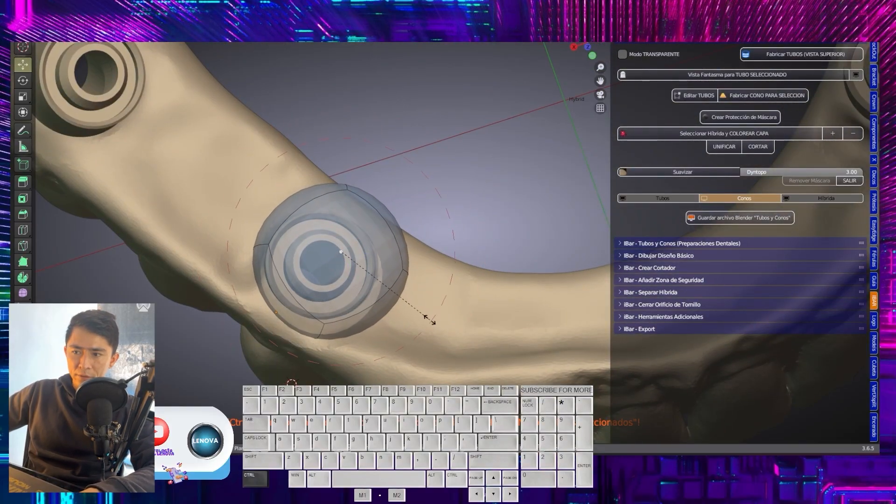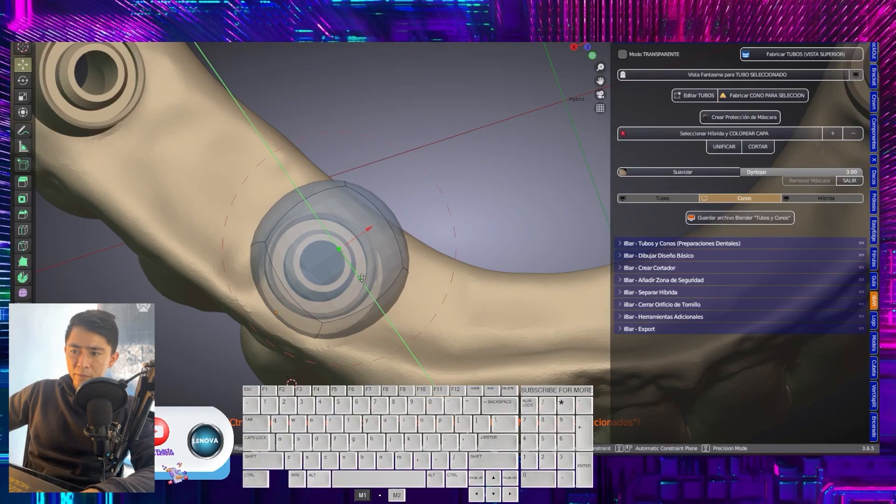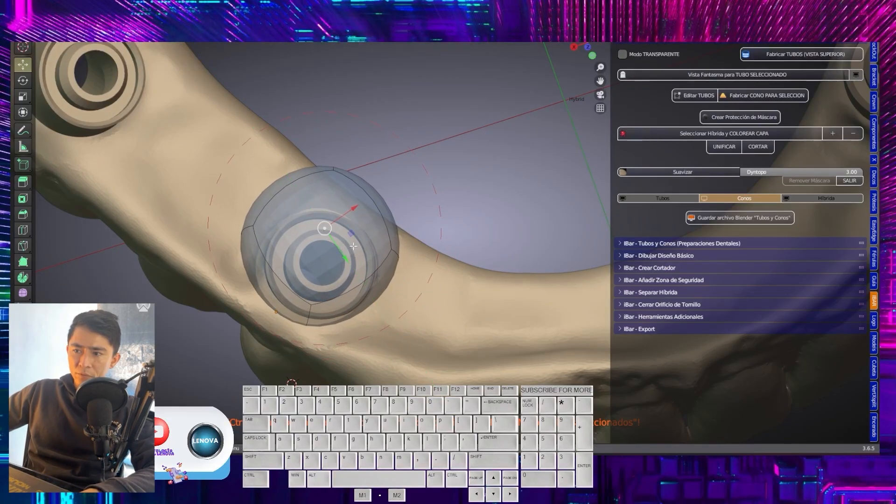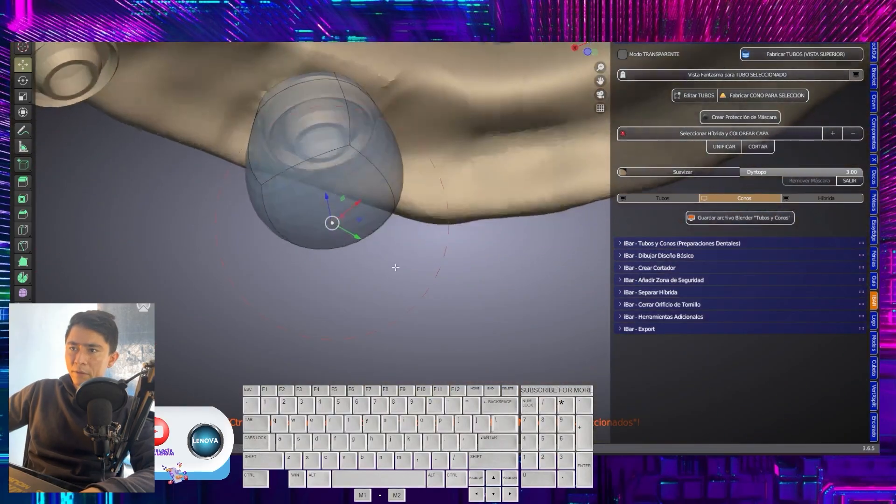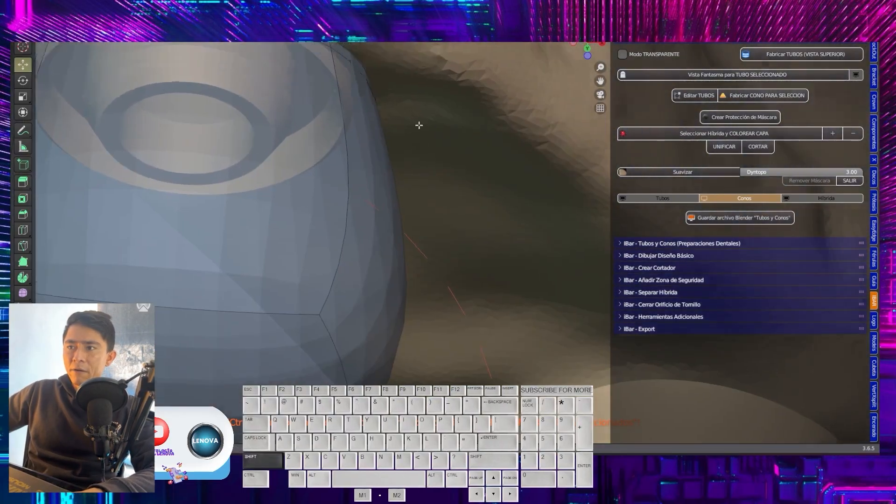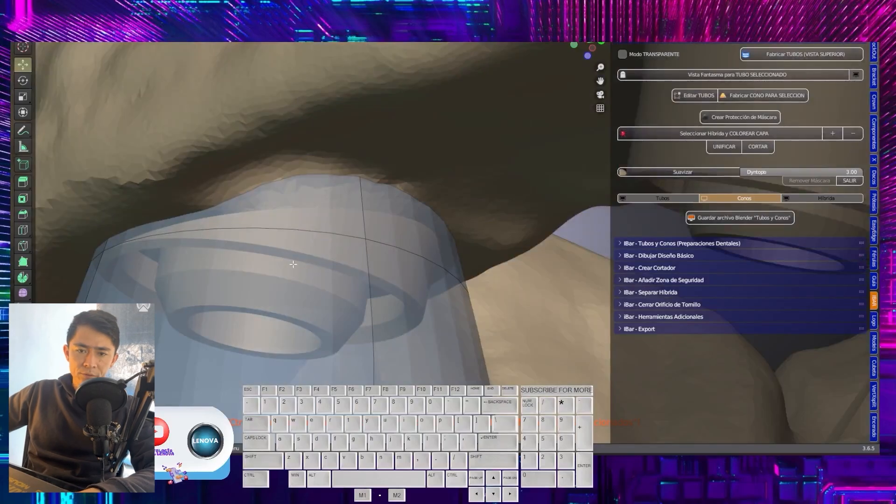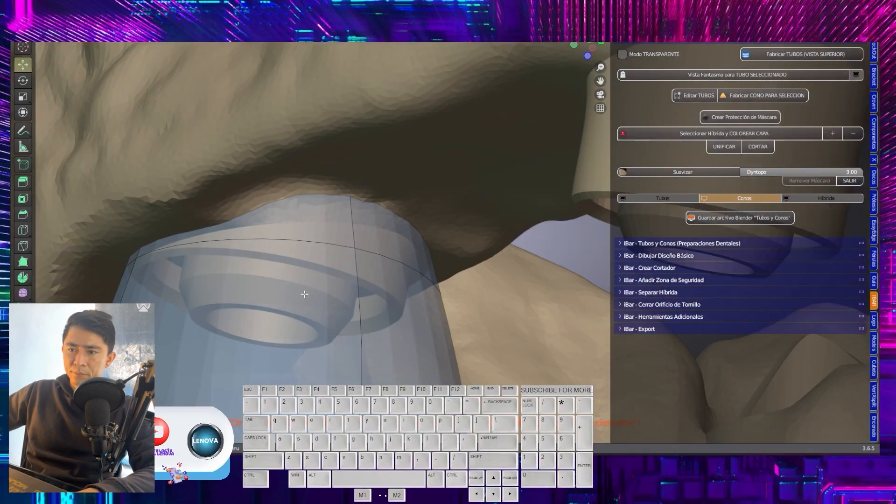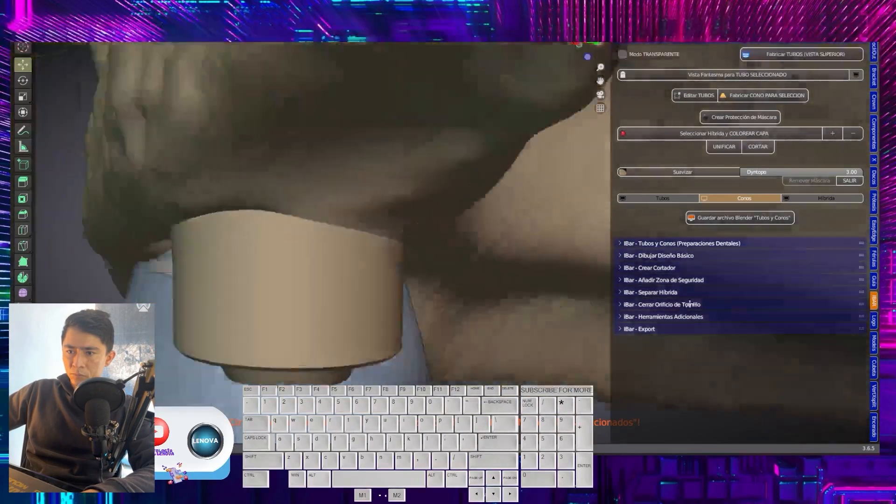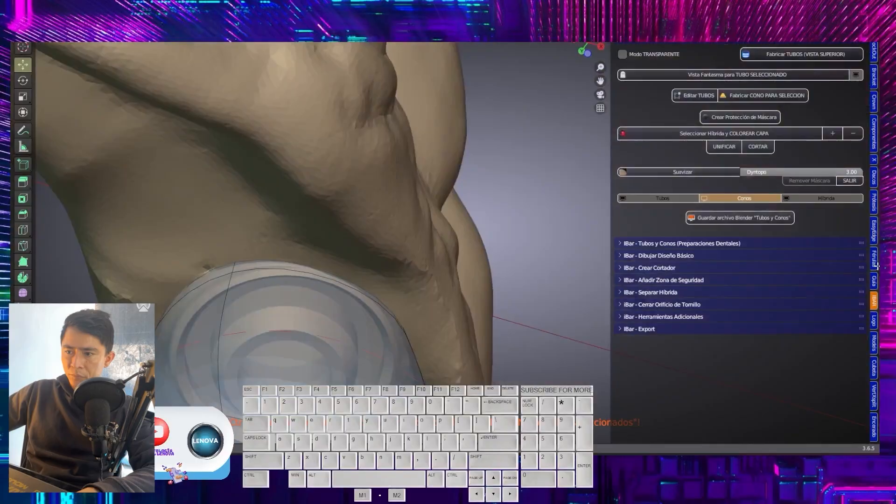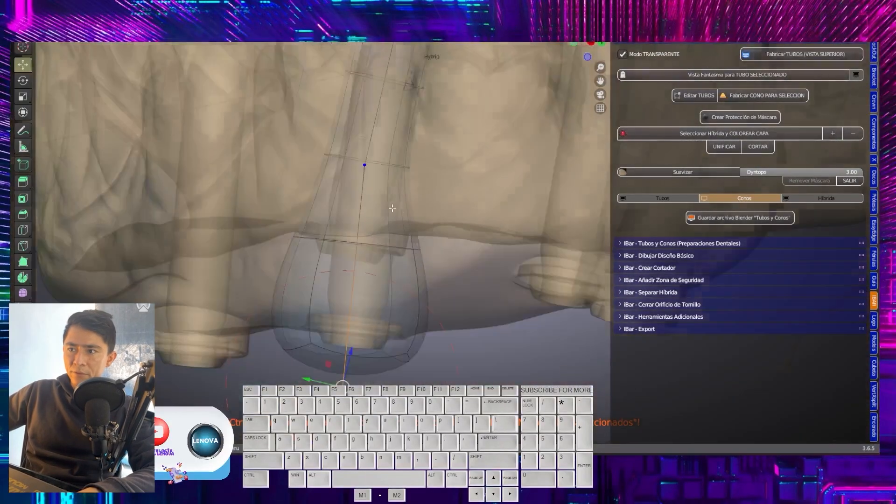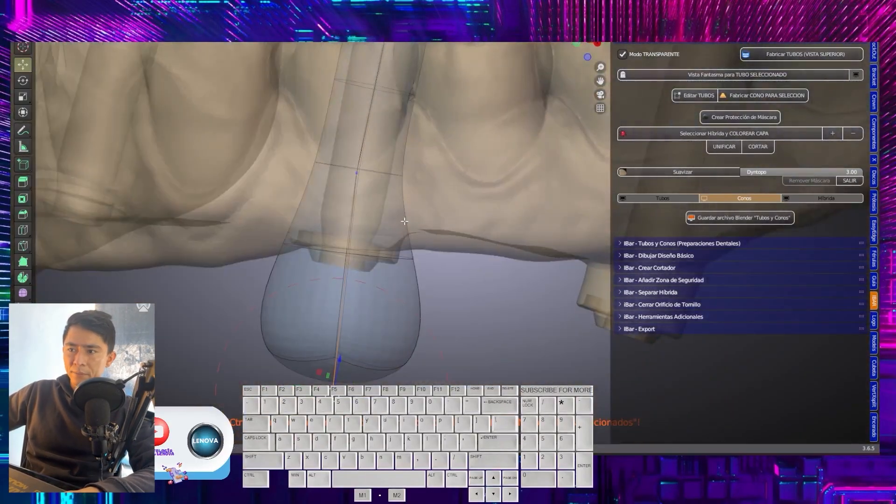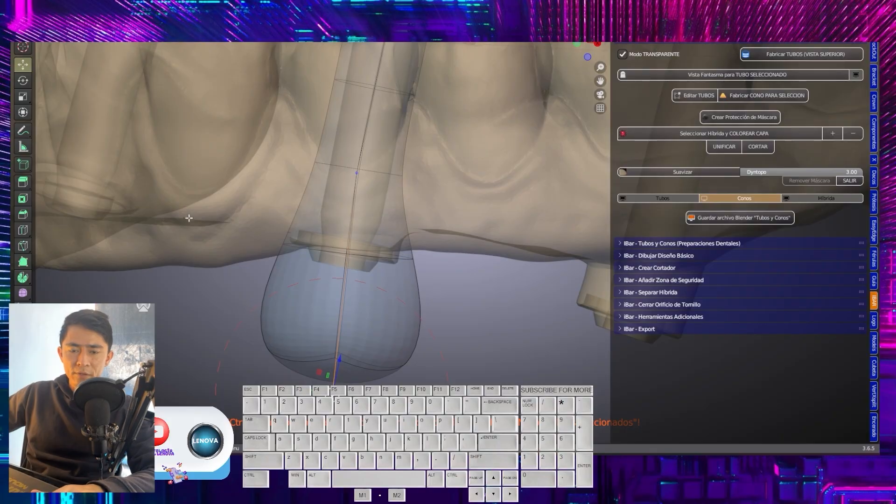Look, I can do the following. I am going to reduce it again. And what I do is reposition this lower node in such a way that the entire chimney head is within our cylinder. We'll evaluate the x-rays again. And this is how it looks. We will perform the same exercise on each of our chimneys.